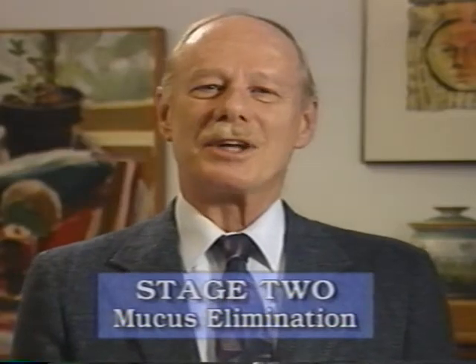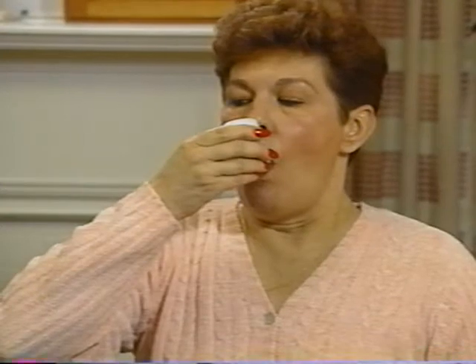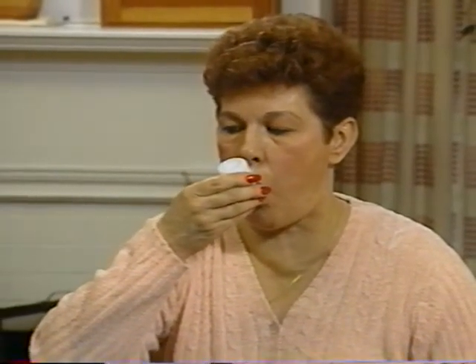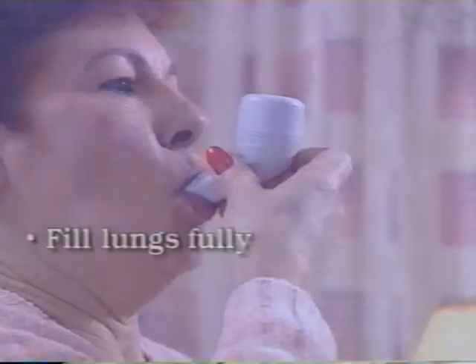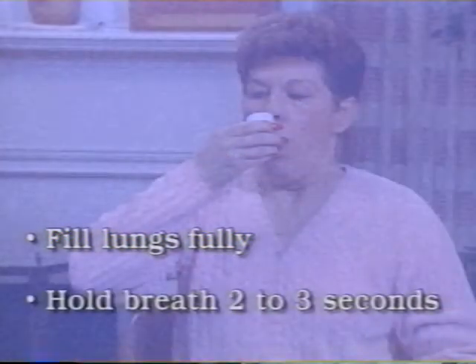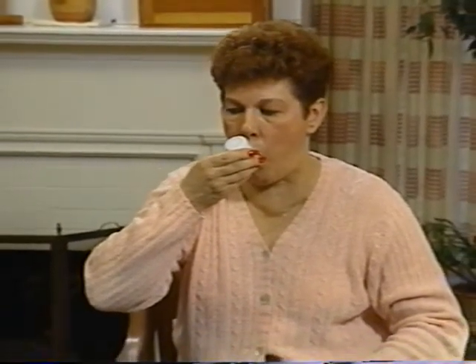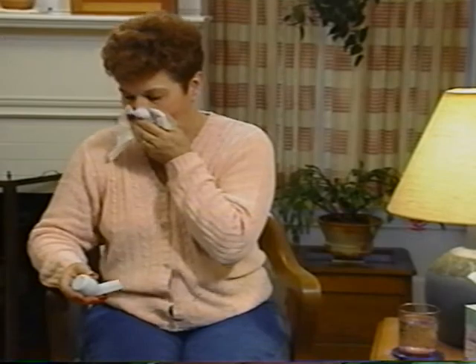Now you are ready for stage 2, mucus elimination with cough. To accomplish mucus elimination, perform 1 or 2 additional breaths through the flutter. This time, breathe in slowly and as fully as comfortably possible. Really fill your lungs with air. Again, hold your breath for 2 to 3 seconds. Now, breathe out forcefully through the flutter as completely as you comfortably can. This forceful breath moves the mucus up to a level in your airways that triggers a cough.